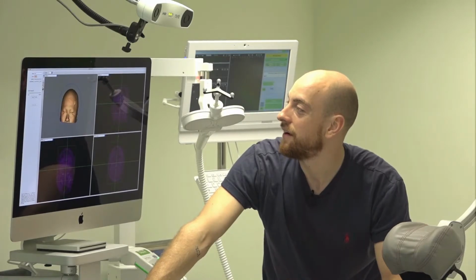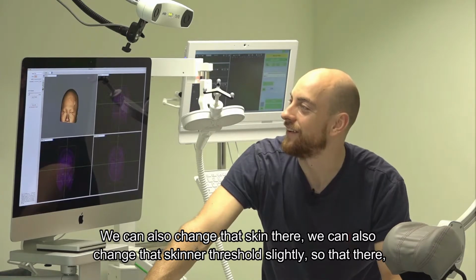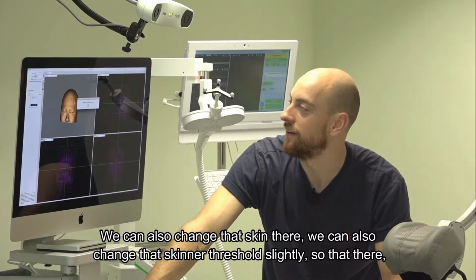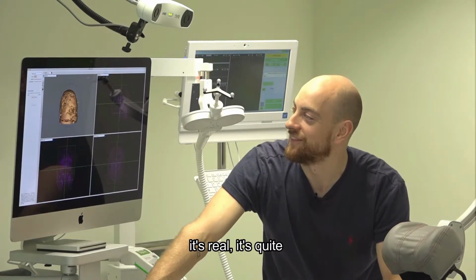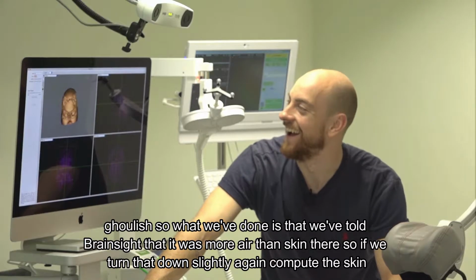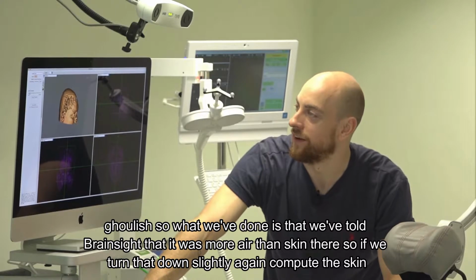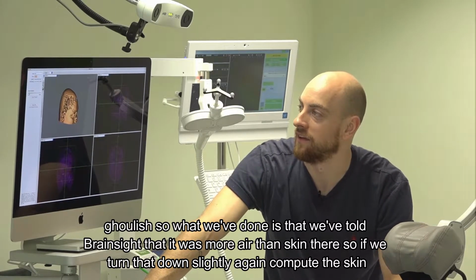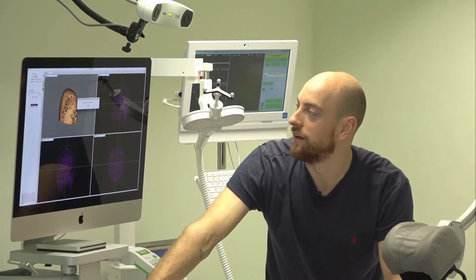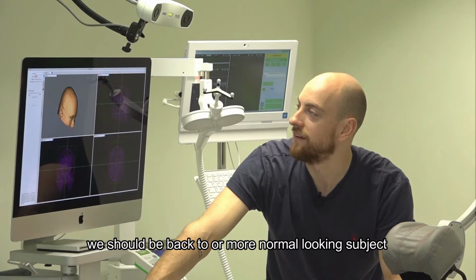We can also change that skin air threshold slightly. Okay, so that there is quite ghoulish. What we've done there is that we've told BrainSight that there's more air than skin there. So if we turn that down slightly, again, compute the skin, we should be back to a more normal looking subject.